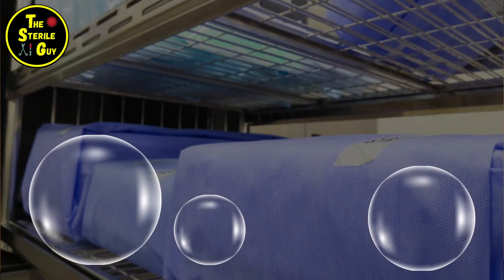Pressurized steam and air are two completely different things molecularly that do not mix — it's kind of like oil and water. So what would happen if you didn't remove the air from the sterilizer before you pumped in the steam is you would end up getting bubbles of air — either a giant bubble or a bunch of little bubbles — that could rest over parts of an instrument tray or instruments and not allow steam to penetrate. And you know what that means? It could render those instruments possibly unsterile.